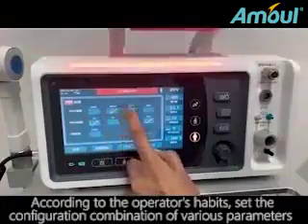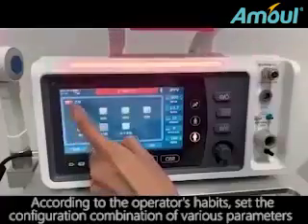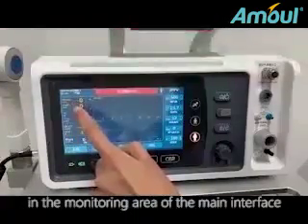Configuration. According to the operator's habits, set the configuration combination of various parameters in the monitoring area of the main interface.